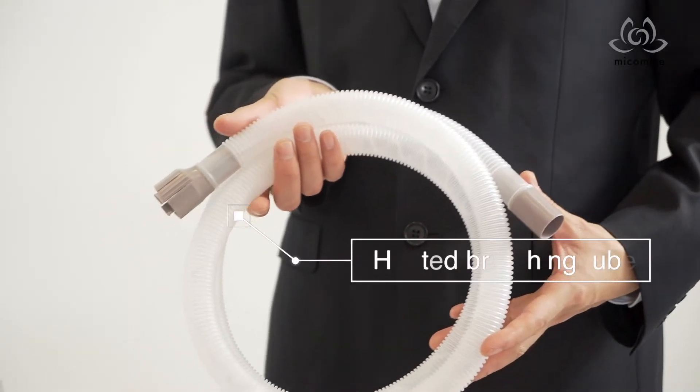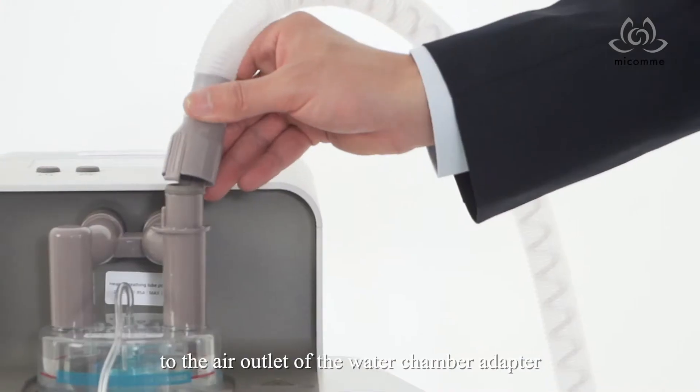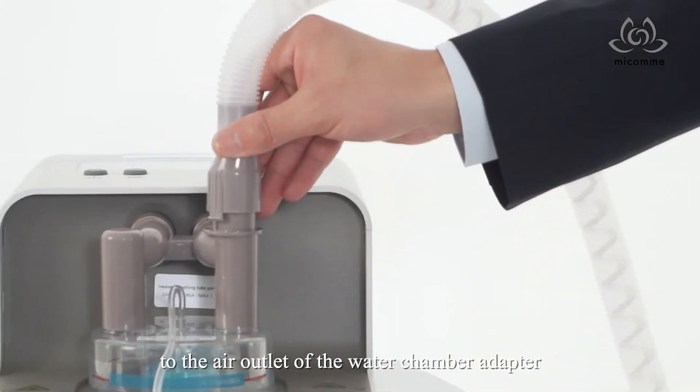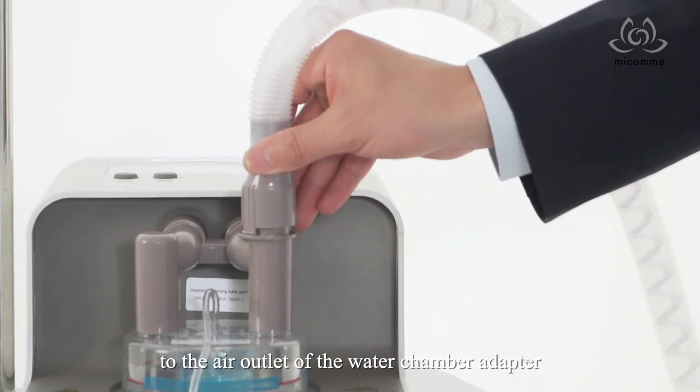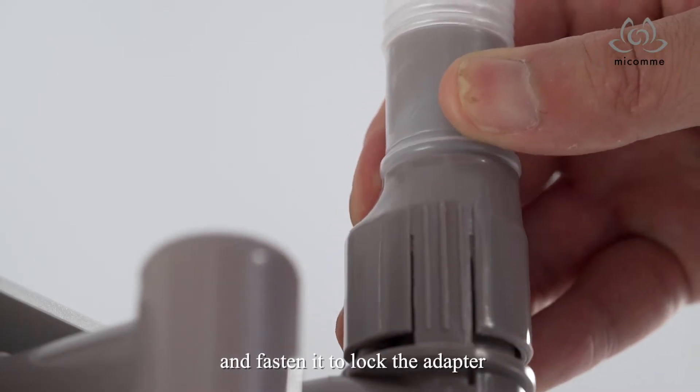Then push the water chamber firmly until it clicks into place. Connect the heated breathing tube to the air outlet of the water chamber adapter and fasten it to lock the adapter.